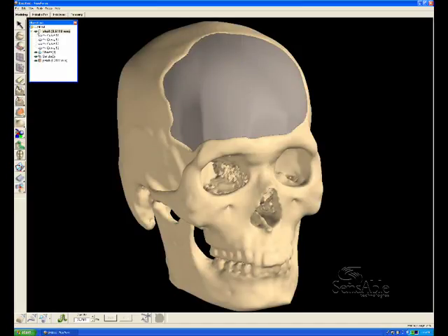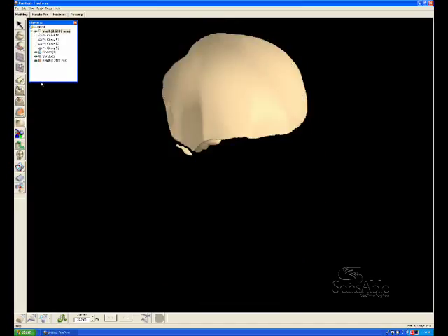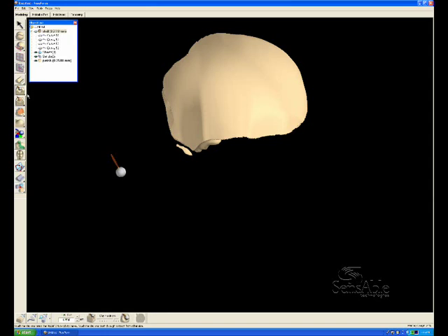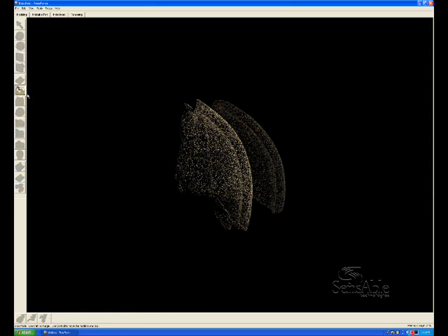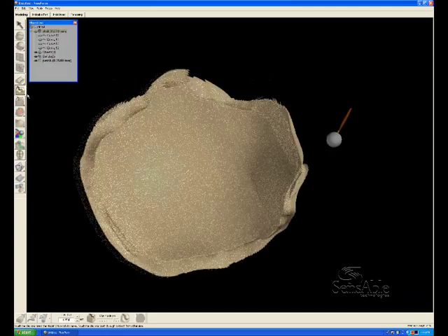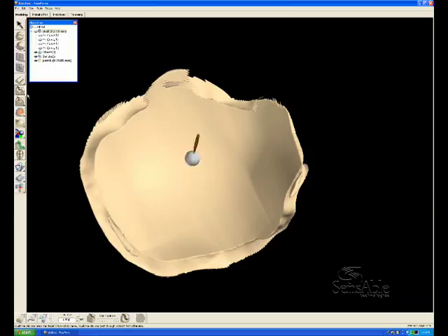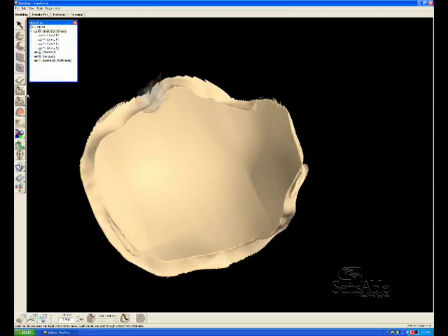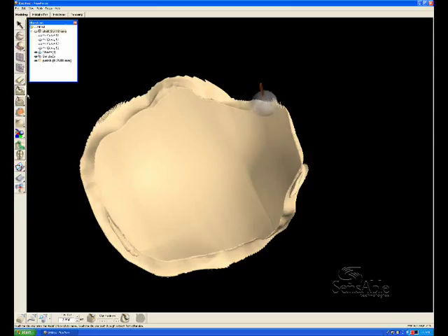So we take the skull and subtract it from the patch. And now I'll hide the skull so that you can see what's happened to the patch. We've created a perfect juncture between the defect area and the geometry of the patch. But everywhere that hung inside the skull has created these undercuts.